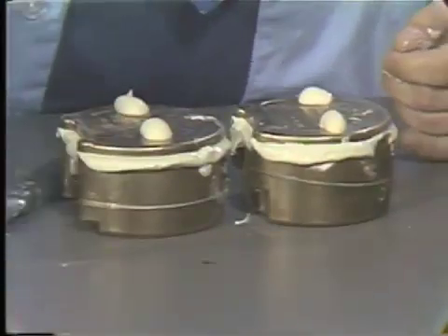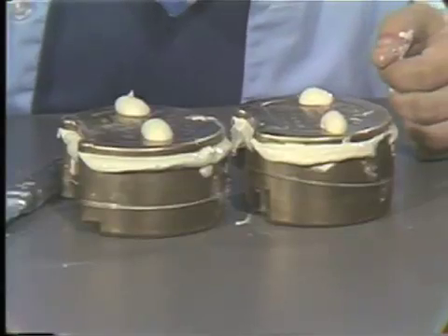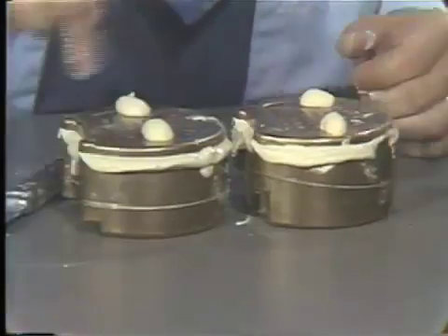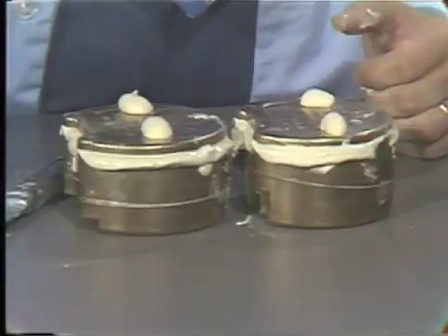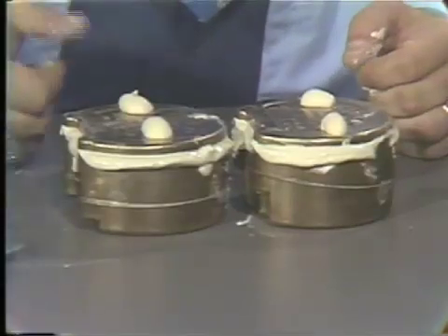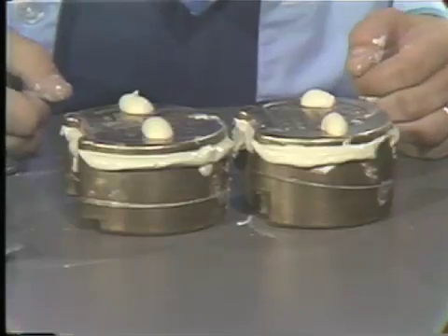This procedure is very simple, but it's important to have a very good mix and vibrate it well into the mold so that the teeth are in intimate contact with the stone with no voids. I will go away from camera for a few minutes and come back and show you how we clean up our molds prior to the boil-out.